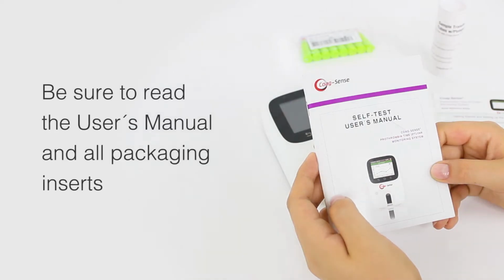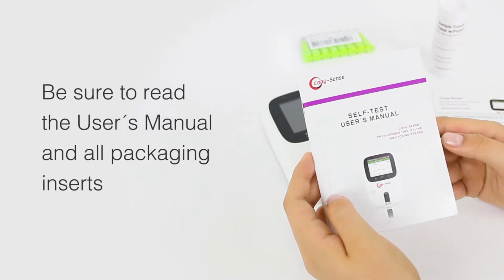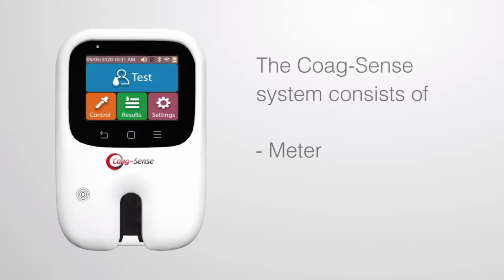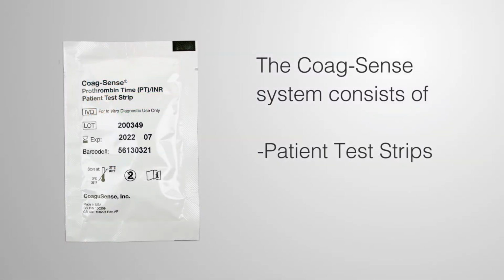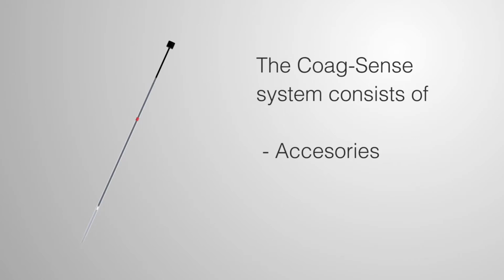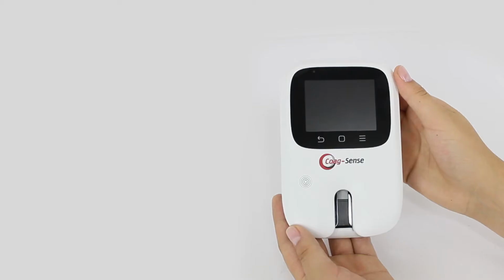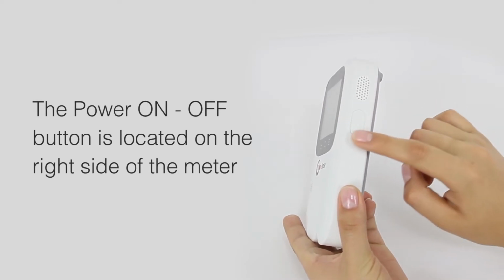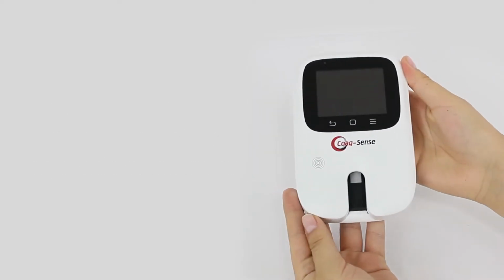For complete instructions, be sure to read the user's manual and all packaging inserts. The Coag-Sense system consists of a meter, single-use individually pouched PT strips, control strips, and certain accessories required for testing. The power on-off button is located on the right side of the meter.